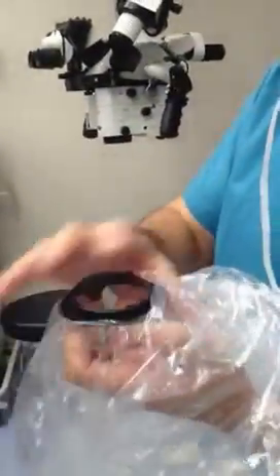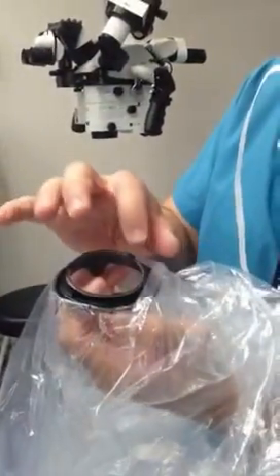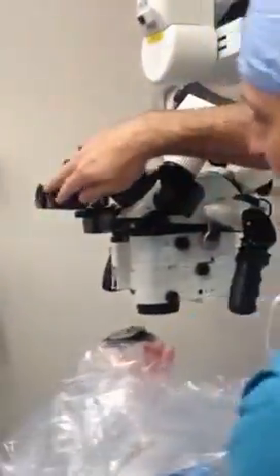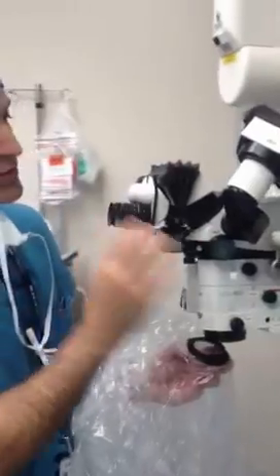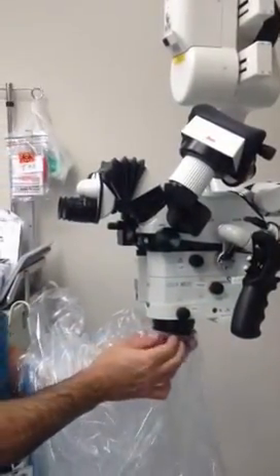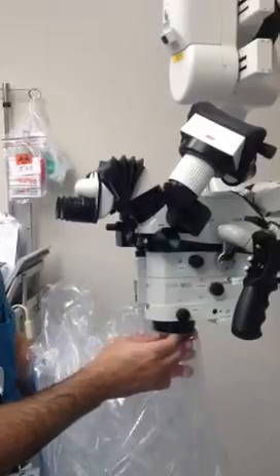You put your fingers on the tabs, and on the eyepiece — remember, the flat part goes by the surgeon. The other three go on the other side. So let's put it on the microscope. This is the surgeon's side. Here are the controls. The flat part is by the surgeon. Stick it on. Twist.